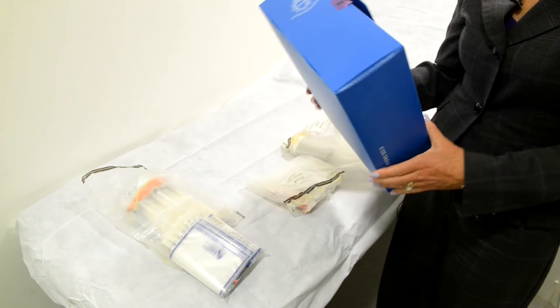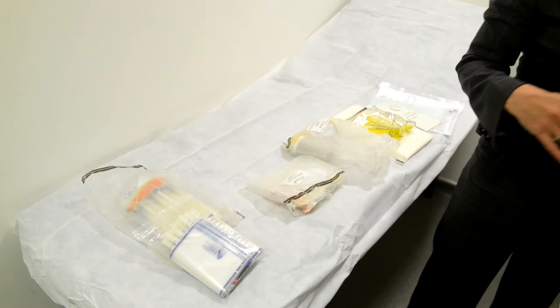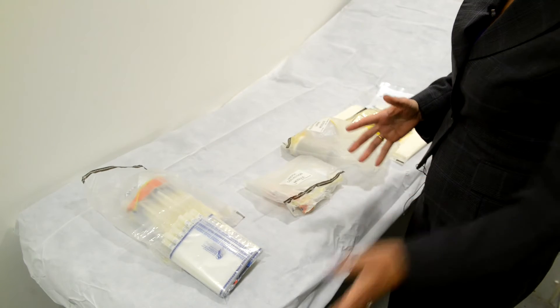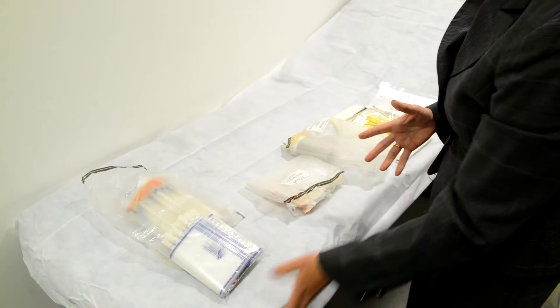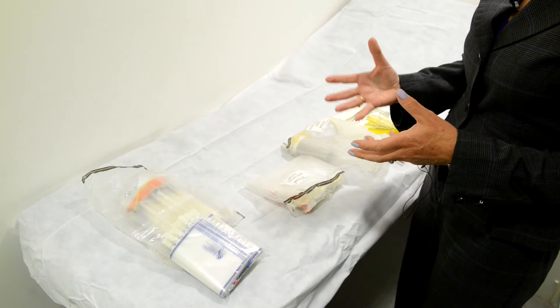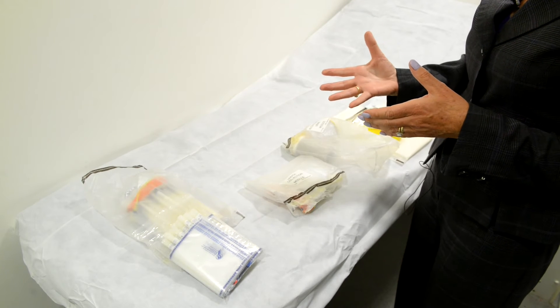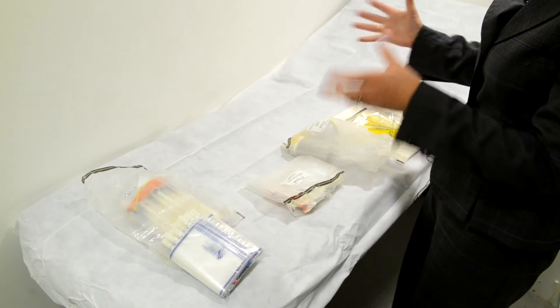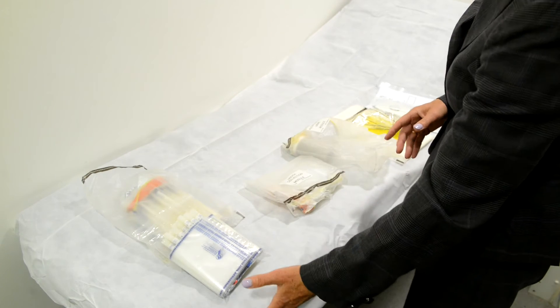This is the medical examination kit. We improved the kit by creating a simple elasticated couch cover that the complainant was concerned about. As soon as they got onto the bench, it would move a single sheet of paper that was usually rolled out. So this was a big improvement.